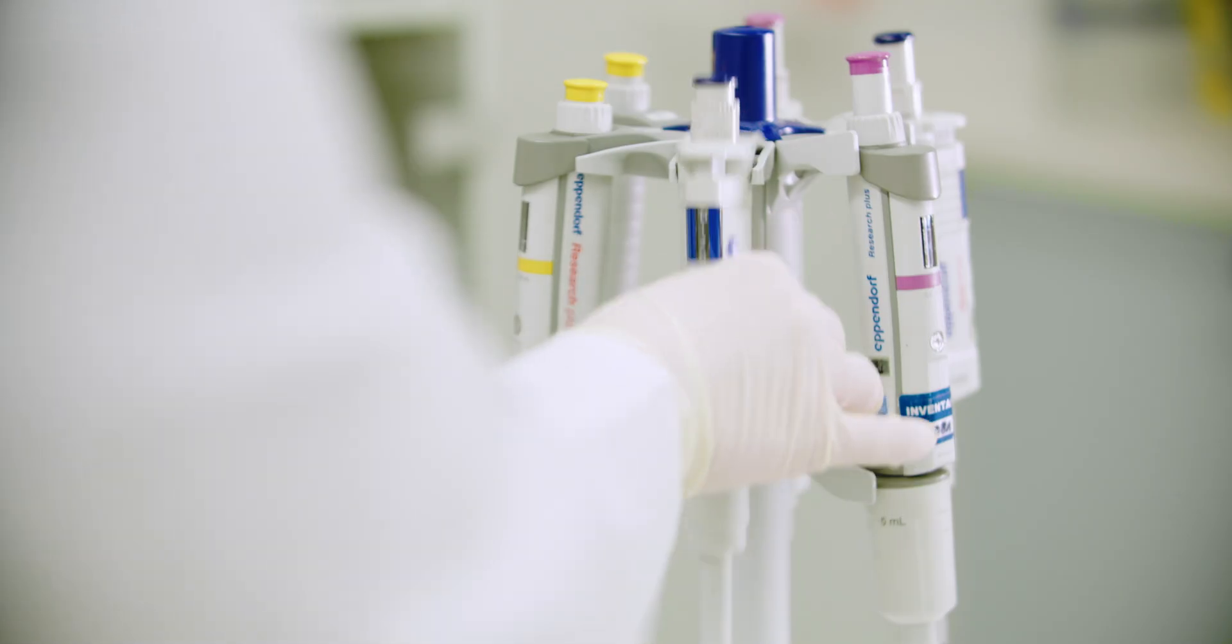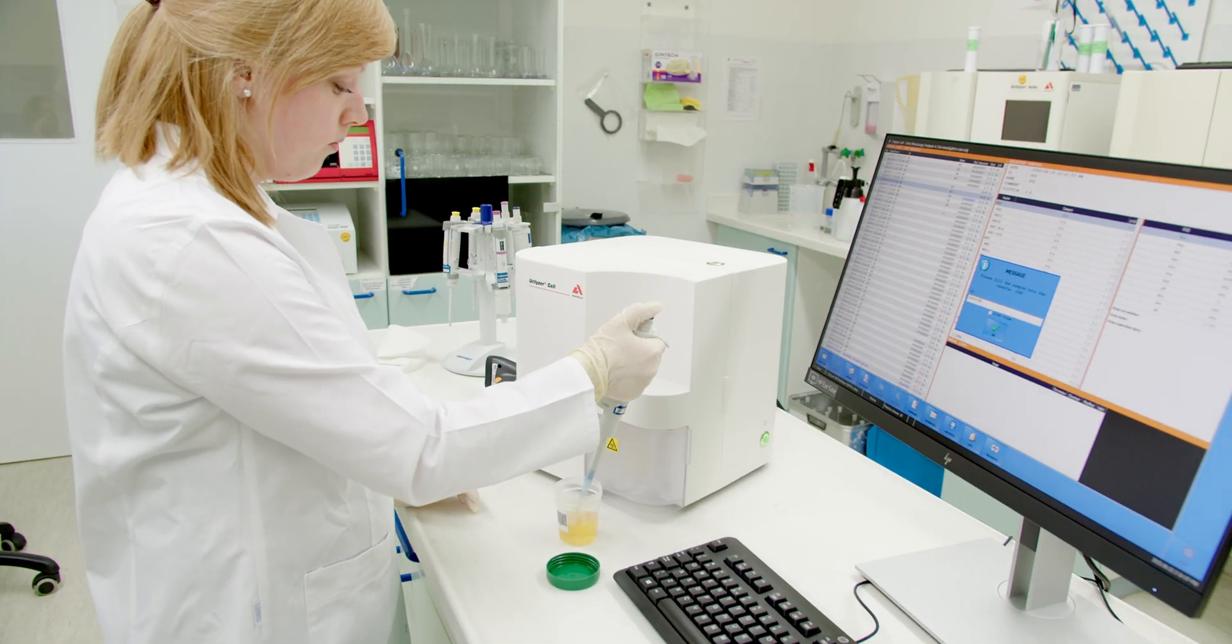For the measurement, 175 microliters of native urine is drawn up with a pipette.